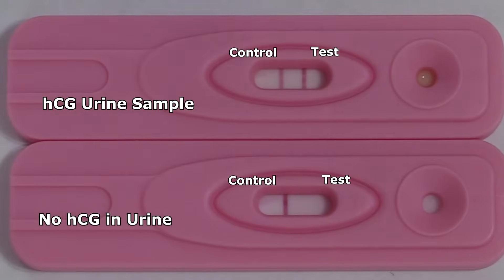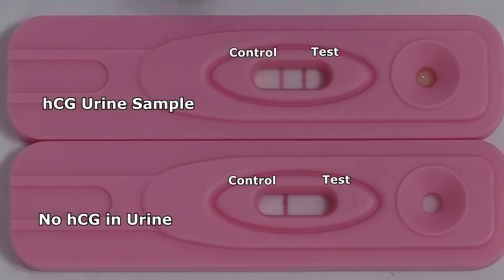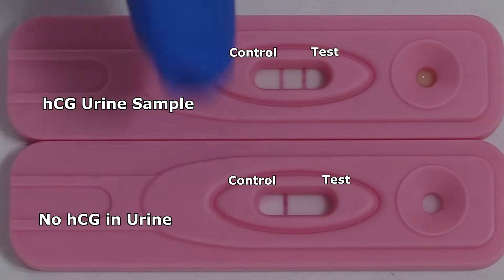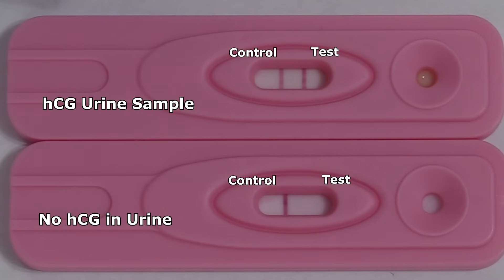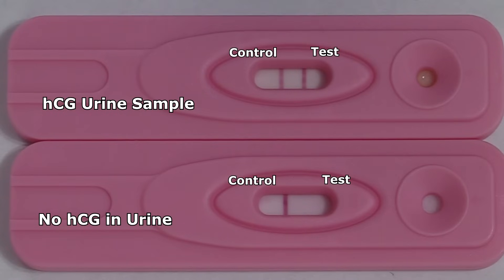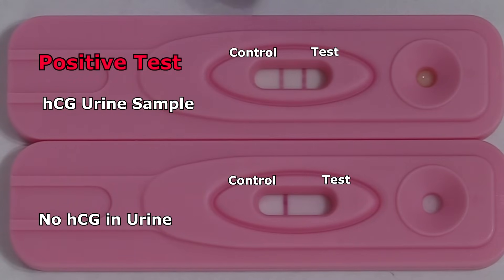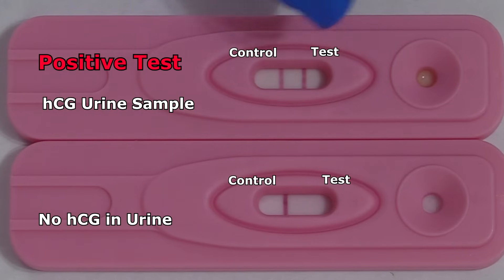It's been three minutes, so now we're going to interpret our results. As you can see, these tests have a line in both of the control areas, which tells us we added enough urine and that the test is working. In this pregnancy test on the top, there is a line in the test area, so it's positive, which tells us that it detected HCG in the urine.